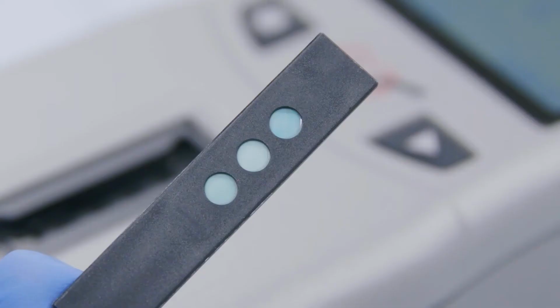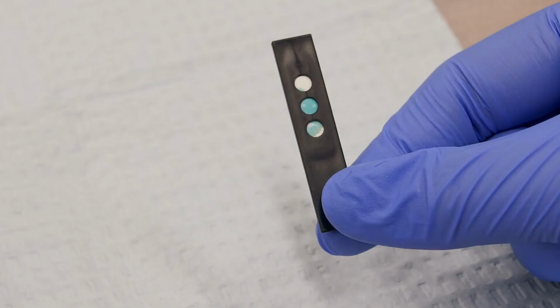If your results are not within range, check the back of the lipid panel test strip to make sure that the 3 circles are completely colored. If they are not completely colored, you might not have applied enough control solution. See the Quality Control Testing section in the CardioCheck Plus version 1.12 user guide for more troubleshooting tips.